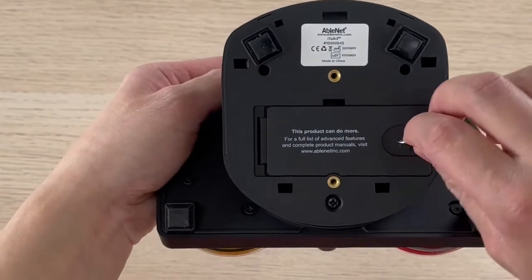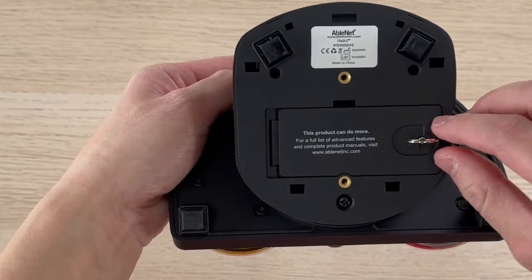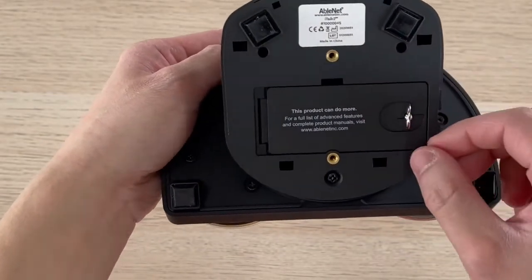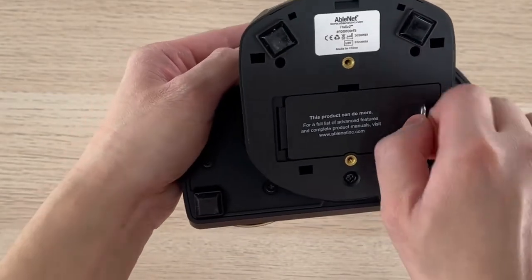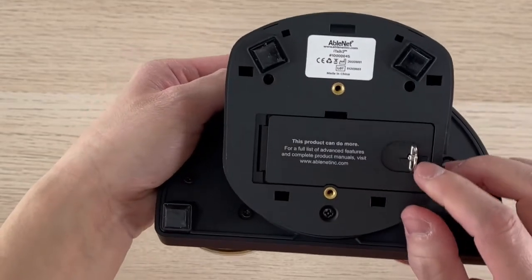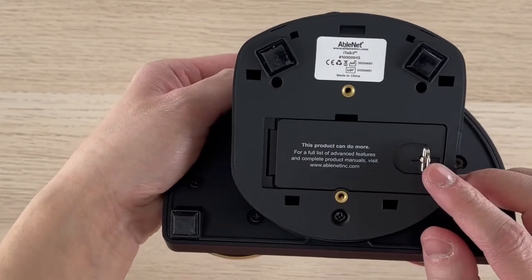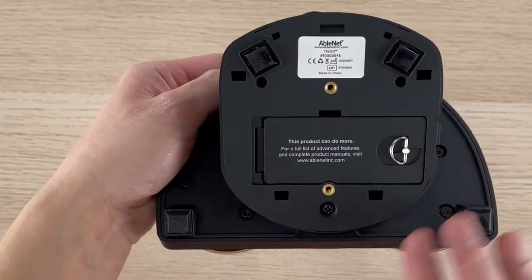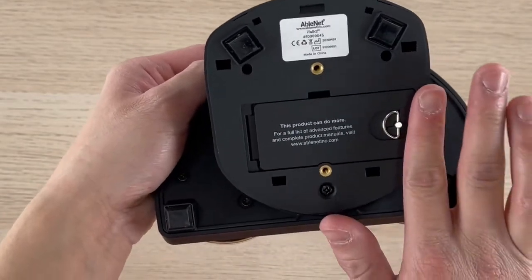To close it, close it back down and turn the D-shaped clip clockwise to securely lock it in, then push it down to secure it flat.